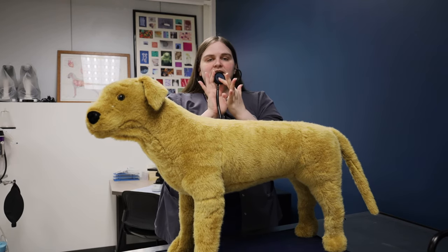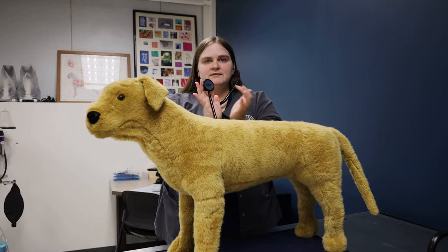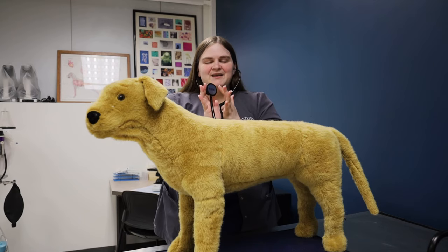The next thing is our diaphragm. This is the diaphragm right here. We want to very lightly tap the diaphragm — lightly, because otherwise you're going to deafen yourself. So please don't do that. Very lightly, we tap the diaphragm.